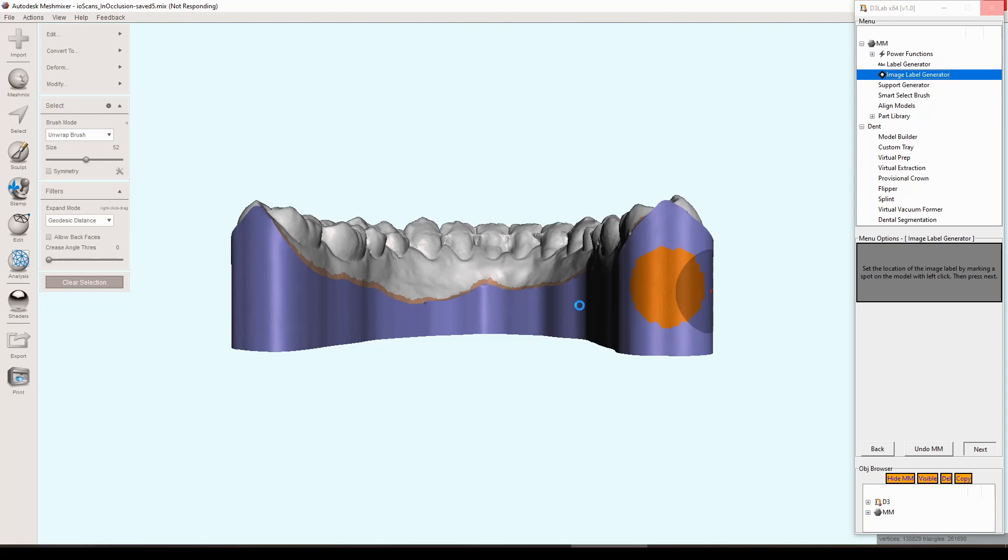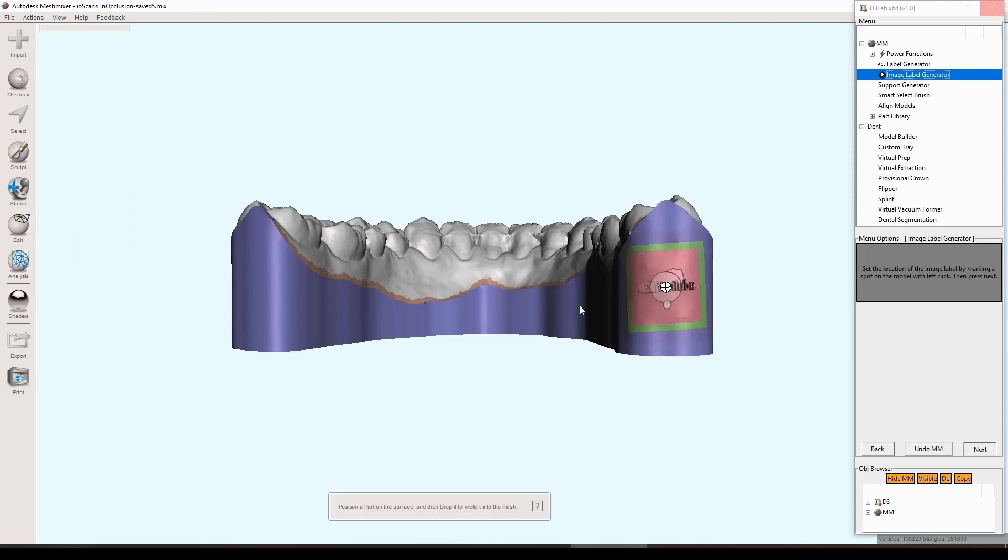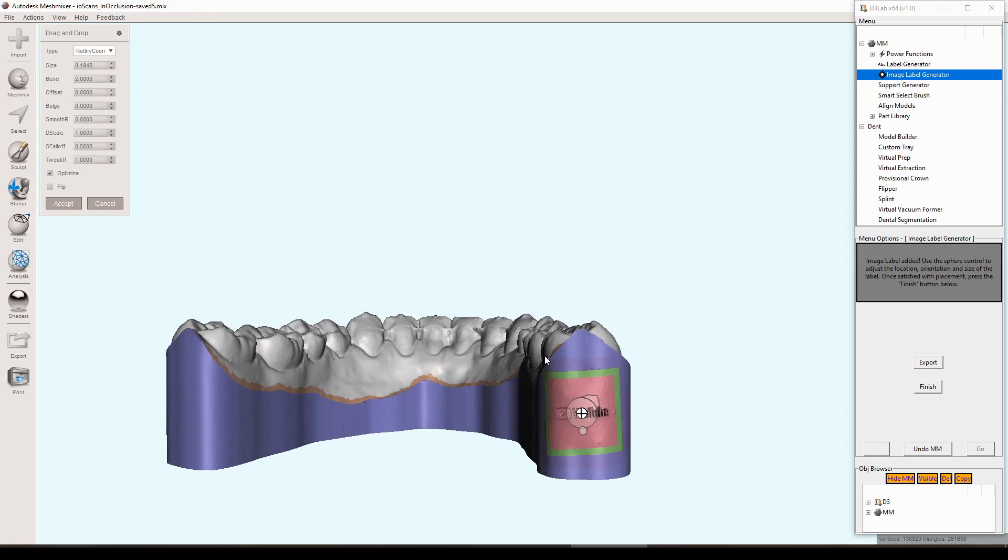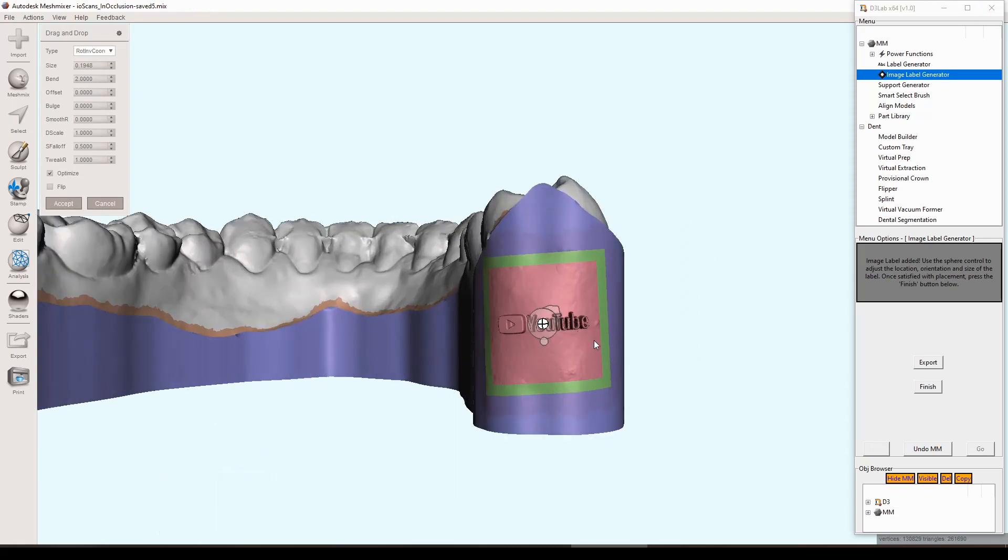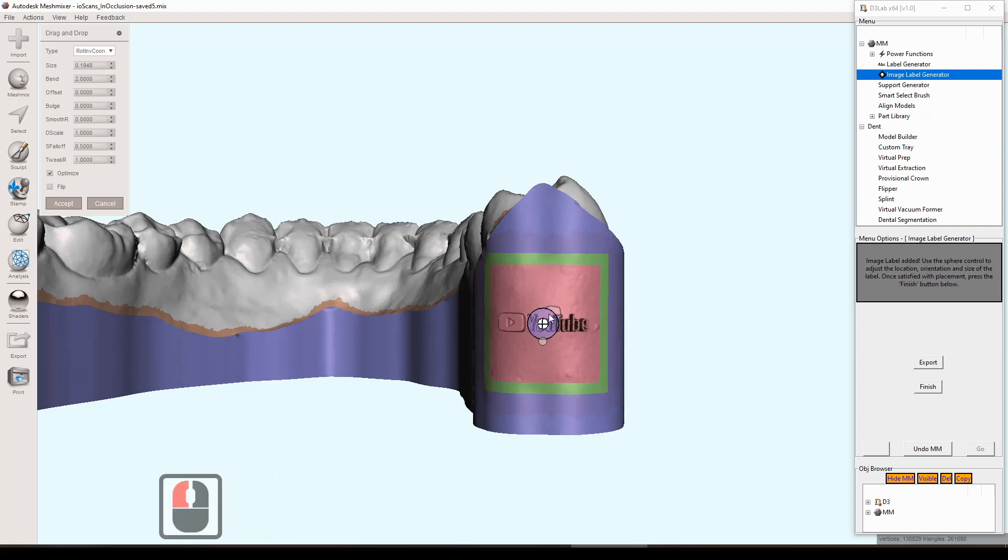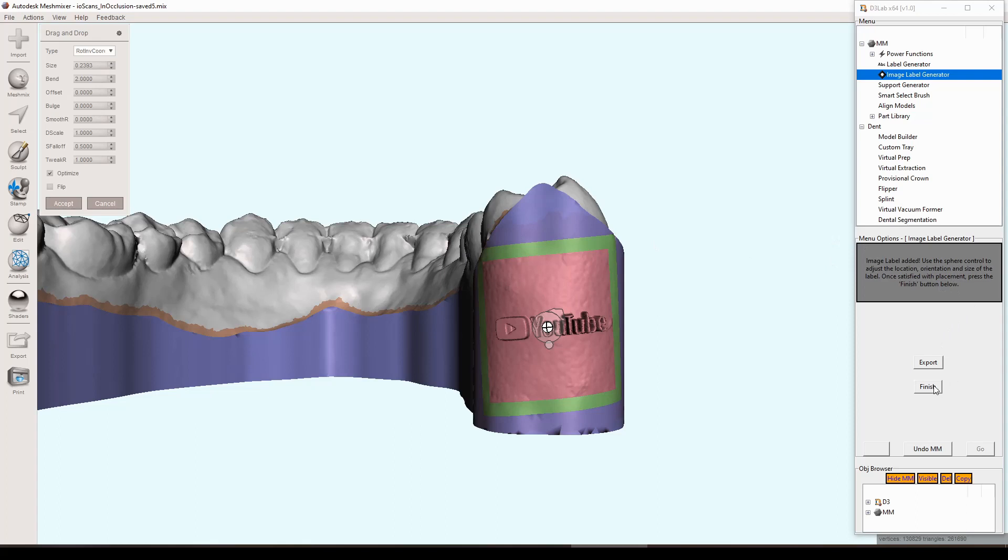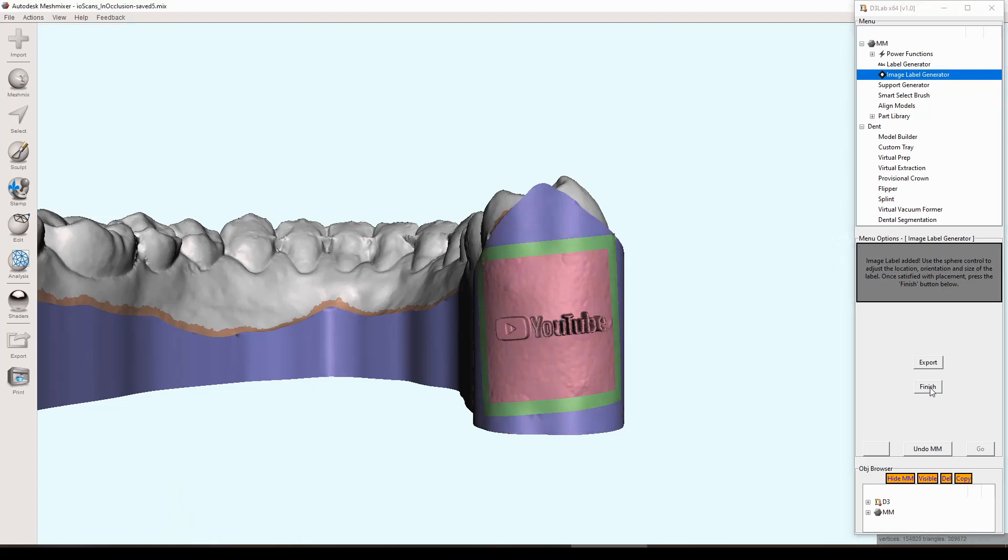At this point it's asking you to select a part of the model where you want to add the image label to. I'm going to click on the heel here and then just press next. Because this image label is such a high resolution model, it does take a little bit of time here for it to load up and to attach to the model. Don't be concerned if it kind of hangs there for a little bit. Eventually it will pop up and we have our model there. We just need to kind of get it in the approximate location where we want it, resize it, and once we're satisfied with how that looks we can just hit the finish button there and we have our first image label.